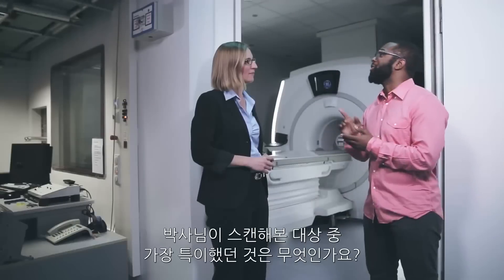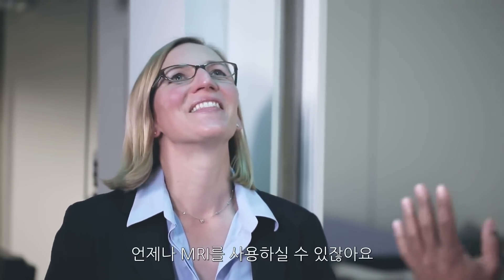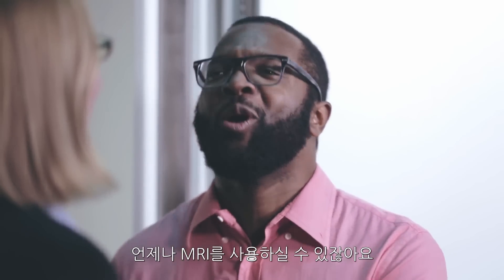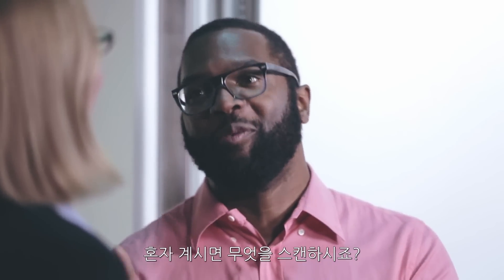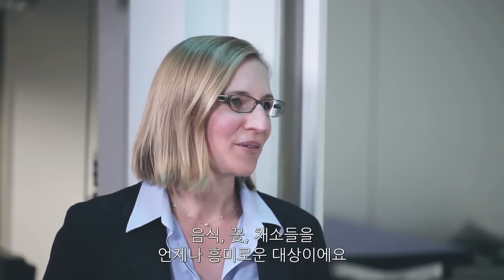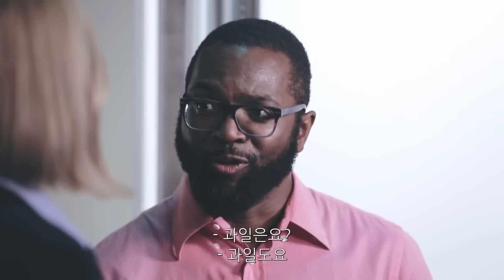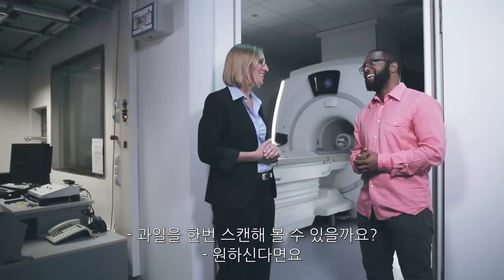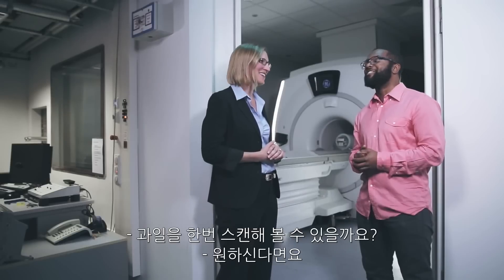My lunch? Your lunch. What's the weirdest thing you've ever scanned? Come on, you have unfettered access to this room — what do you do when no one's here? Fruits, flowers, vegetables are always good. Can we please scan fruits? If you want to, we can scan fruits.